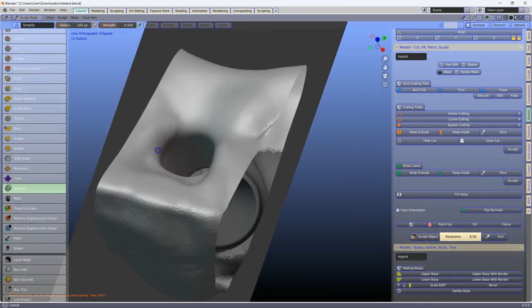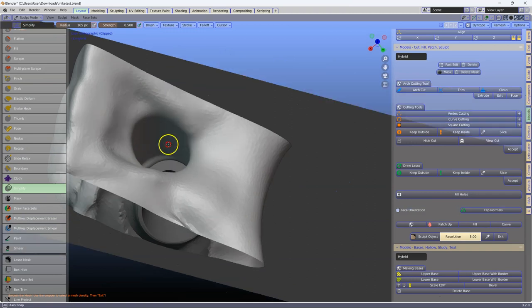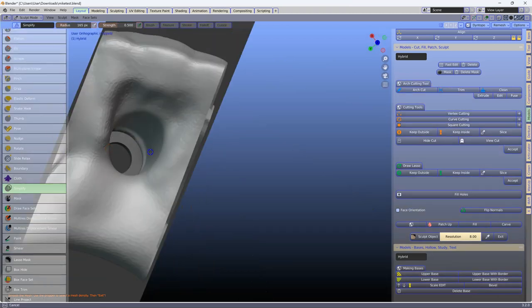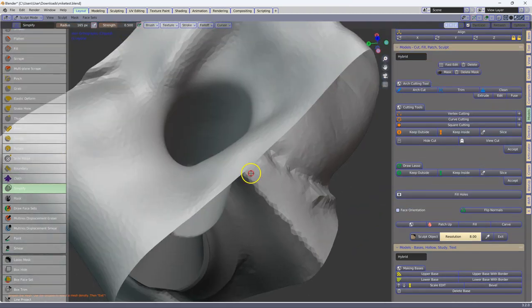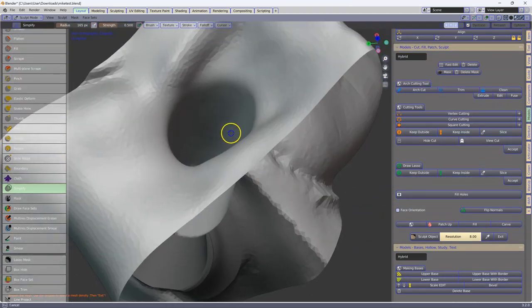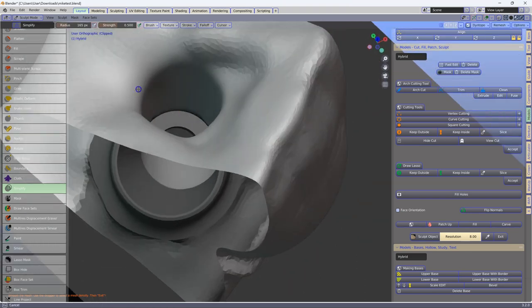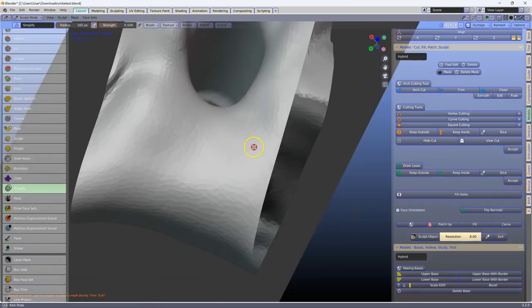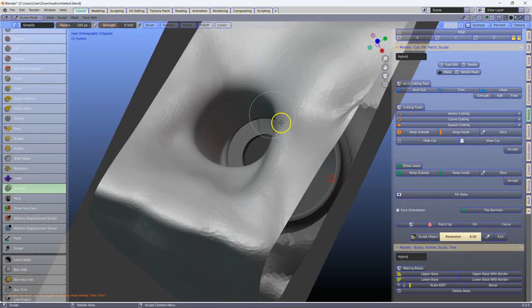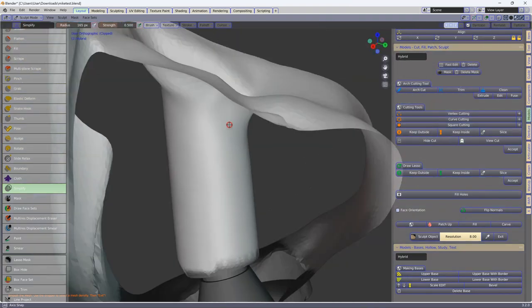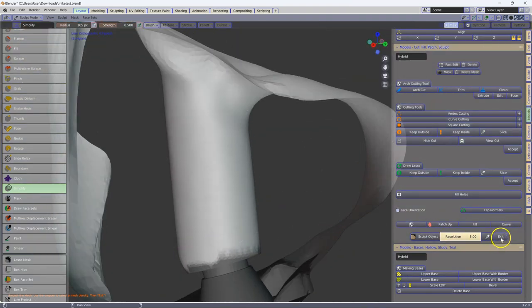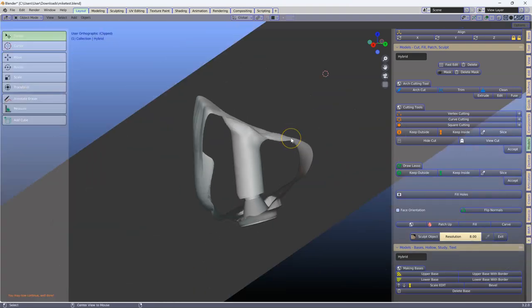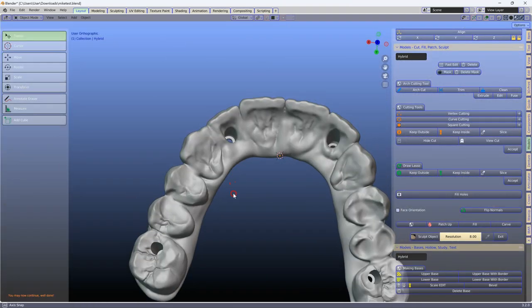Now, unfortunately, there's no other solution, unless you go back to Exocad and fix the geometry. All right, we've got a nice geometry going, exit. Alt-B to get out of it.